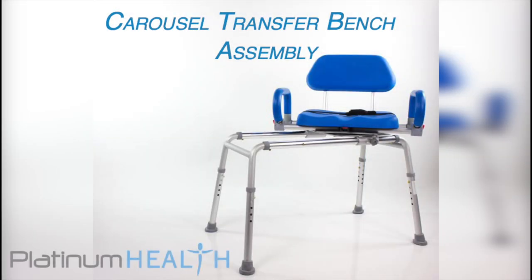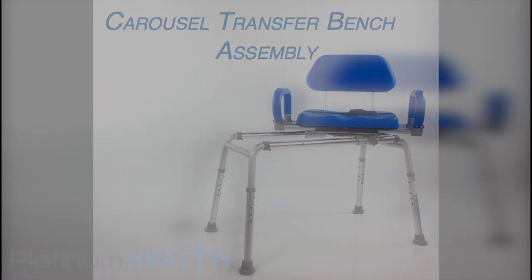Hi guys, Chase here from Platinum Health. Just want to walk you through the assembly of your new Carousel Premium Sliding Transfer Bench with Swivel Seat. Let's get started.